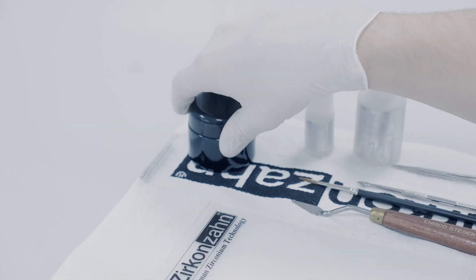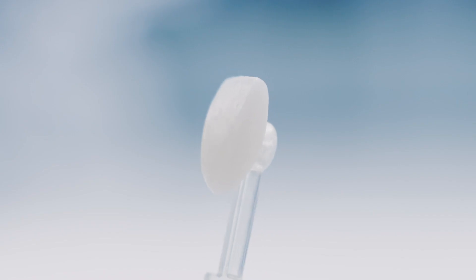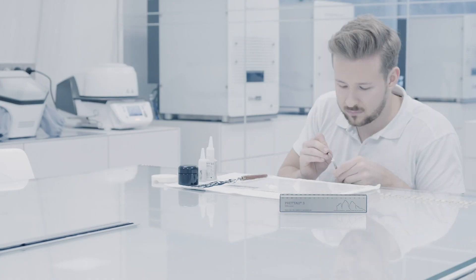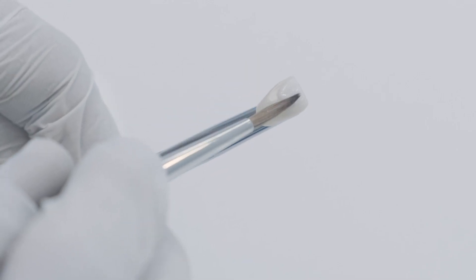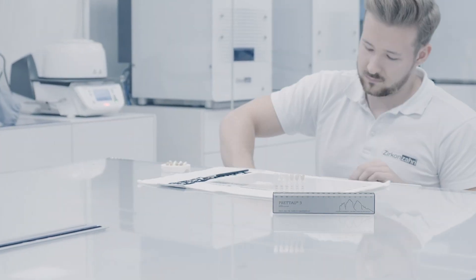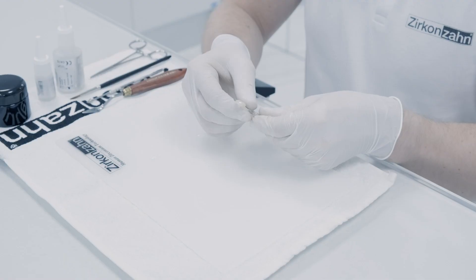Shade guides are also available for individualists. They offer minimally reduced sample teeth which can be further characterized by the application of different incisal materials. In particular, the incisal areas can be further individualized as desired, resulting in truly unique shade guides that precisely reflect individual approaches and aesthetic demands.